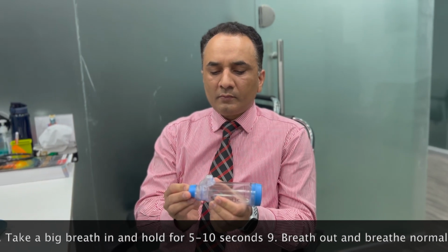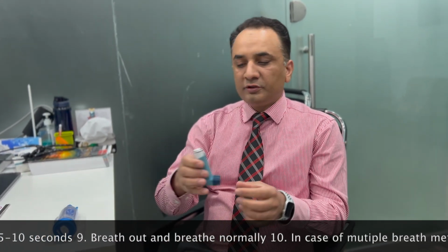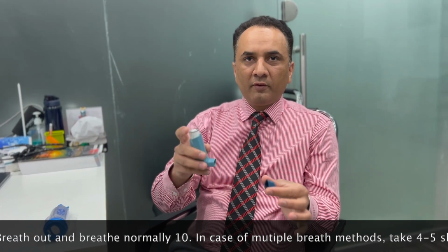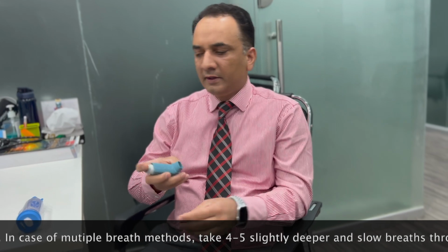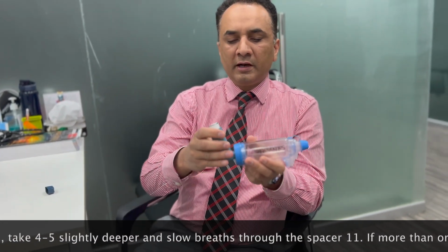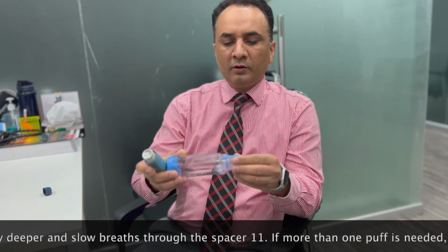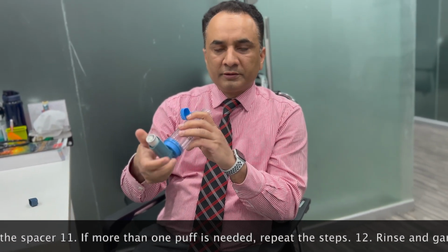Okay. So before using that, you need to remove the cap of the inhaler. You need to shake it well for 3 to 5 seconds, and then put the inhaler through the other end of the spacer, and then open the cap and put it in the mouth.